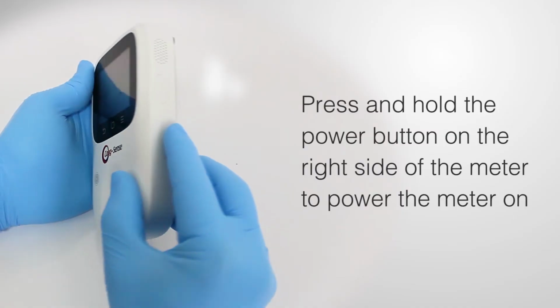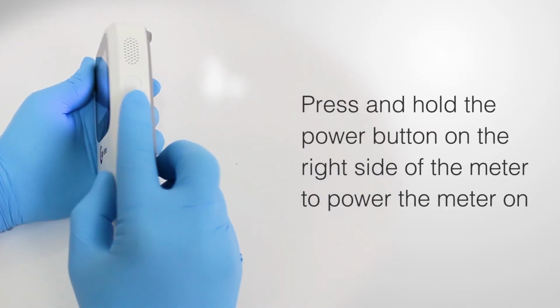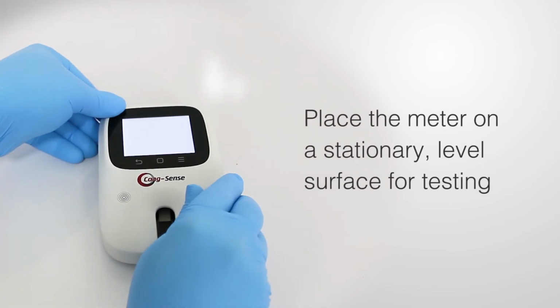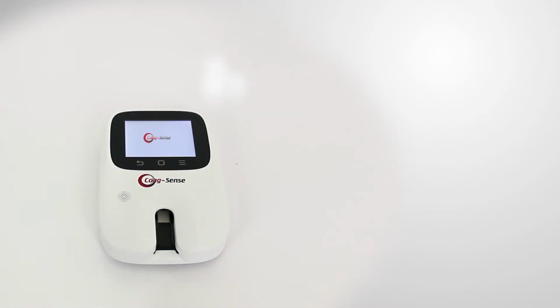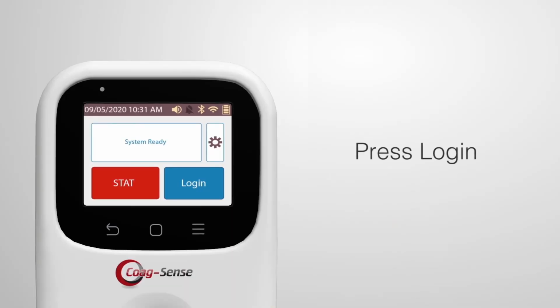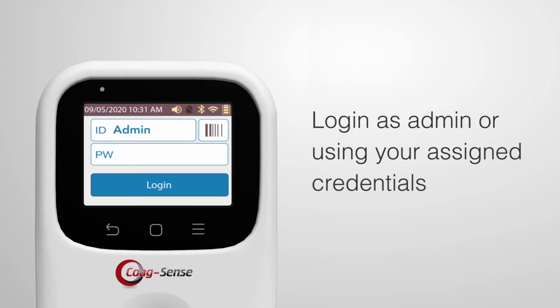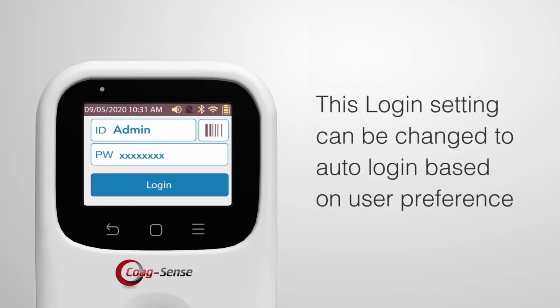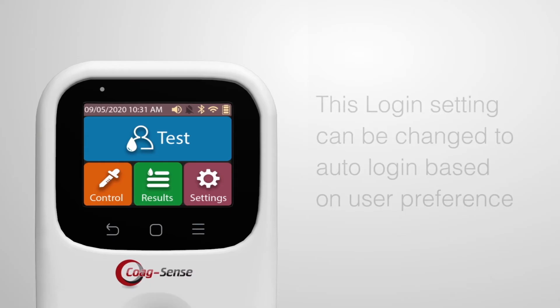To begin, press and hold the power button on the right side of the meter to power the meter on. Place the meter on a stationary, level surface for testing. When the system finishes starting up, the login screen will be displayed. Log in as admin or using your assigned credentials. This login setting can be changed to auto login based on user preference.